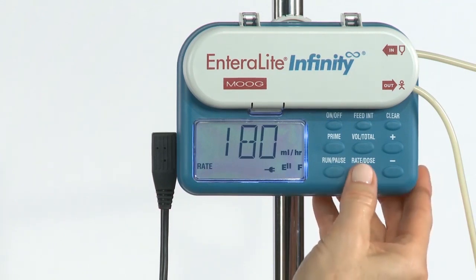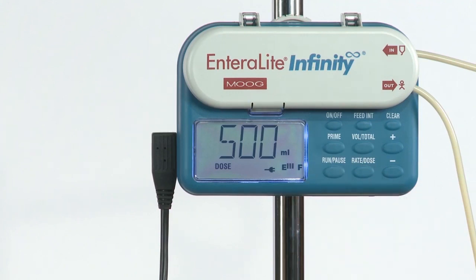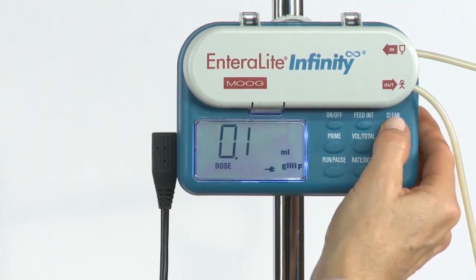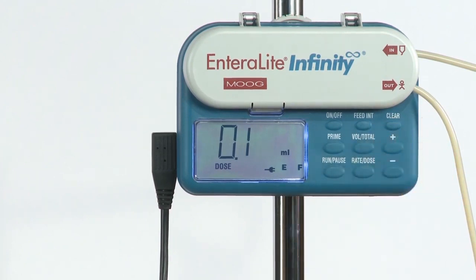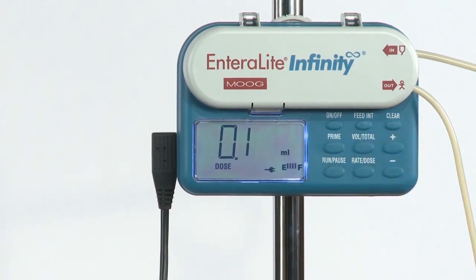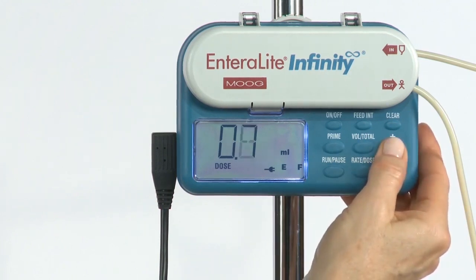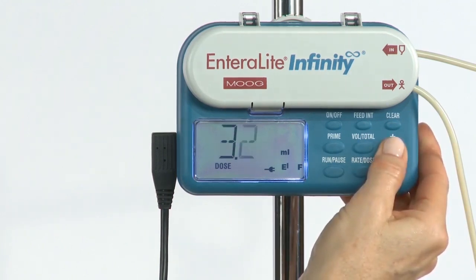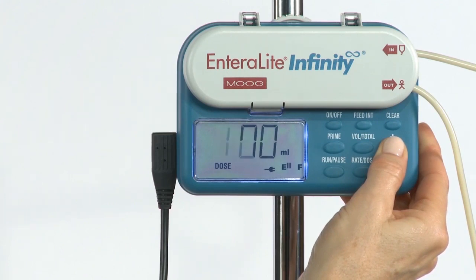Press the rate dose button to set the dose. The lowest possible value is 0.1 milliliter. To increase the dose, hold down the plus key. The longer the plus key is pressed, the faster the dose will increase, advancing in single digits and then increments of 10.